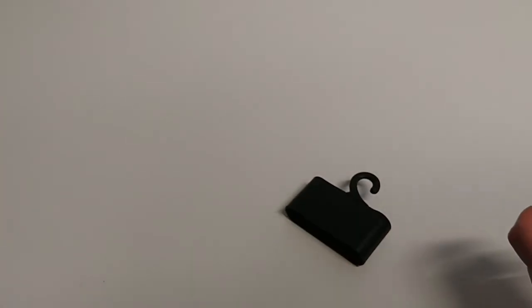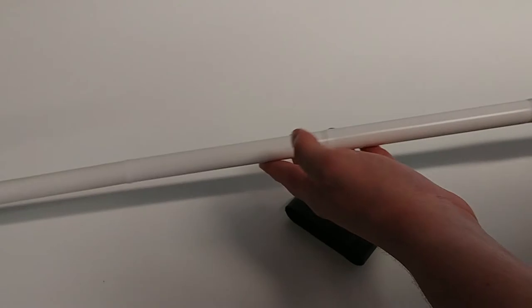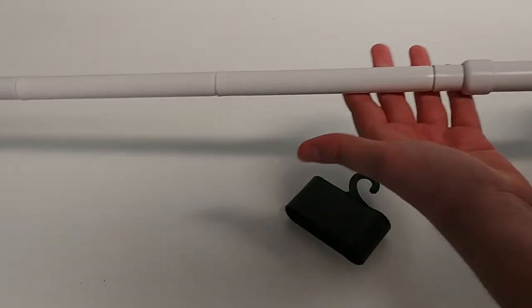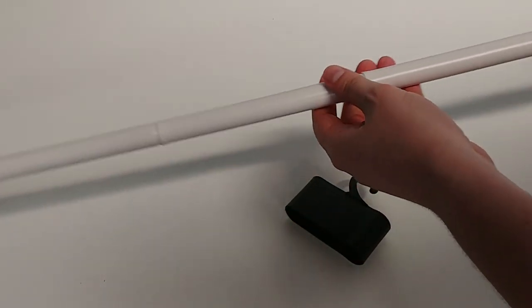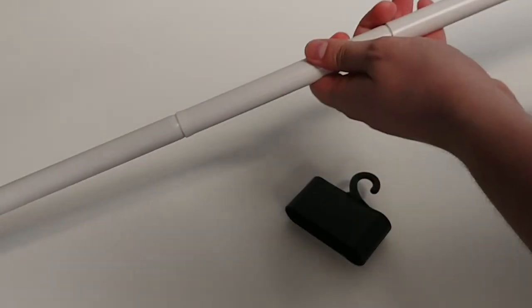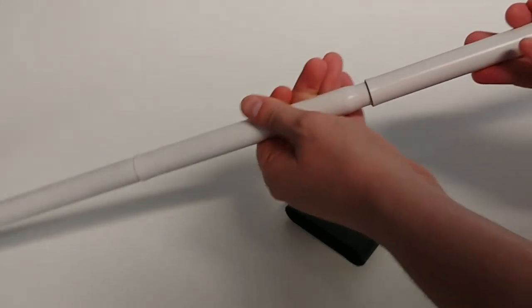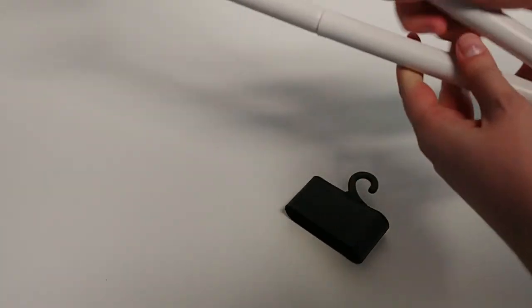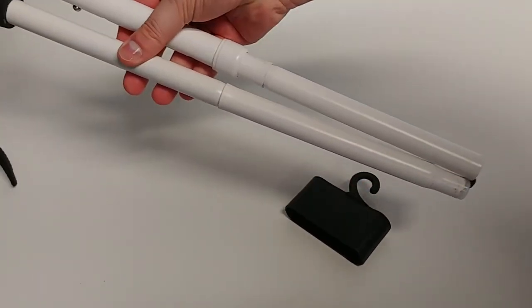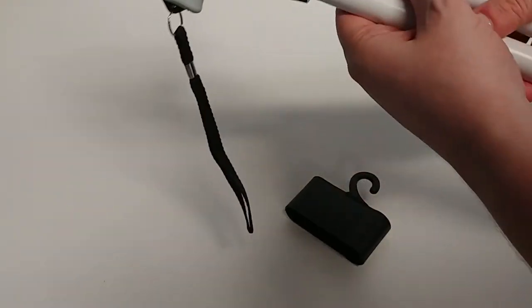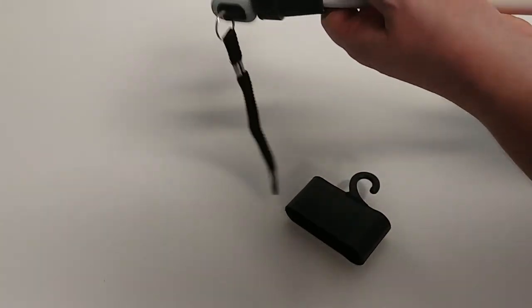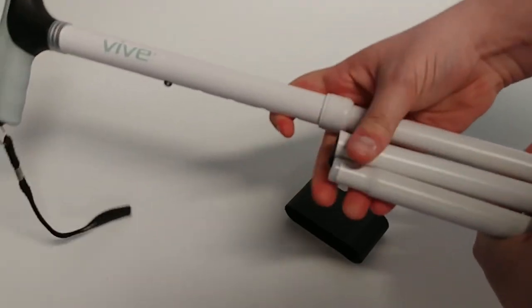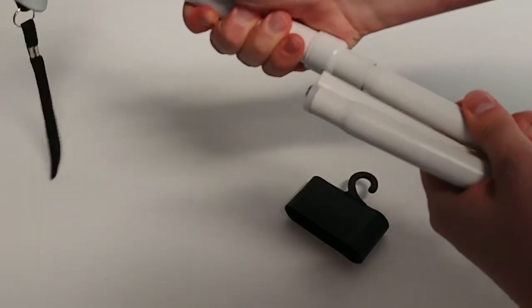We've got the cane straightened out. Easiest way to fold it is here from the middle. Just pull, separate that apart, fold that in half from here, fold that next like so, and one more time from there.